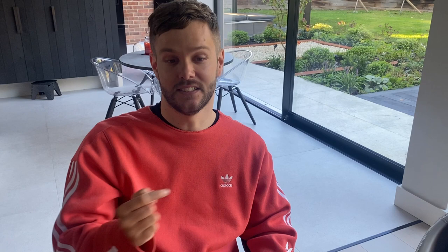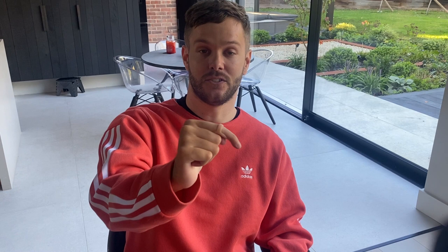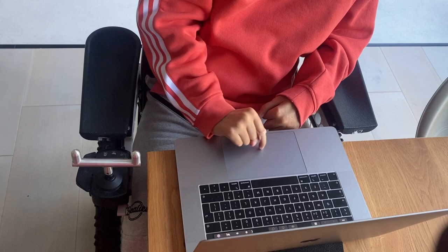I used to have purpose-built splints when I was in the hospital and had that for years until it broke. Then I was trying to find a replacement and stumbled across this one recently, which I quite like because it's very little and very subtle when you're out and about — not everyone's staring at your hand thinking you've broken something. It literally just slides straight onto your finger and rests on the back of the knuckle, so when I put any pressure on a button or on my phone, it just stops my knuckle from bending, keeps my finger nice and straight, and makes it easy to use technology.